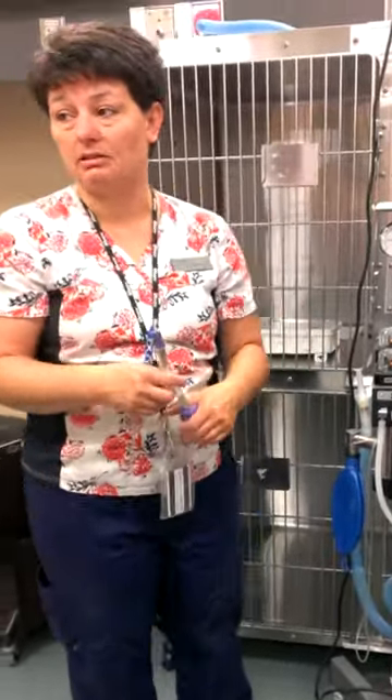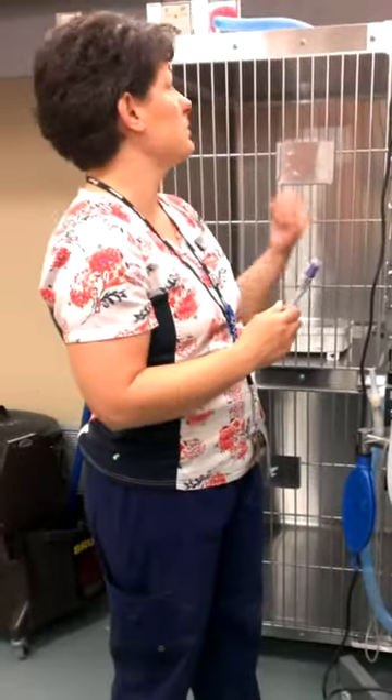If something happened and you had an ISO spill, we do have an ISO spill box. But to be perfectly honest, clear the room and leave. When you come back, keep your mask on, wipe everything down, use gloves, and clean it up that way. It's usually very little because somebody's noticed it quickly and shut it off — not usually a whole bottle on the floor.